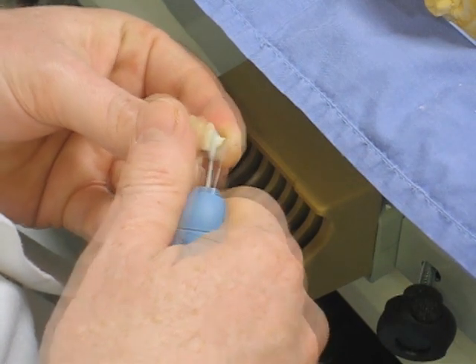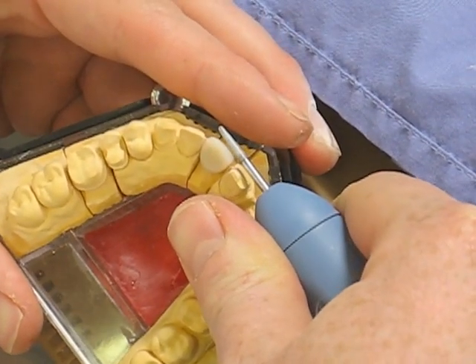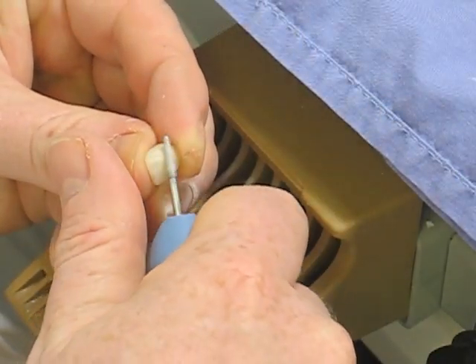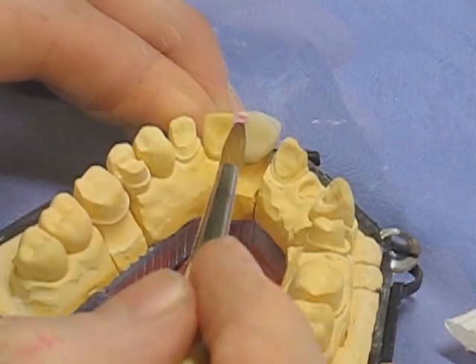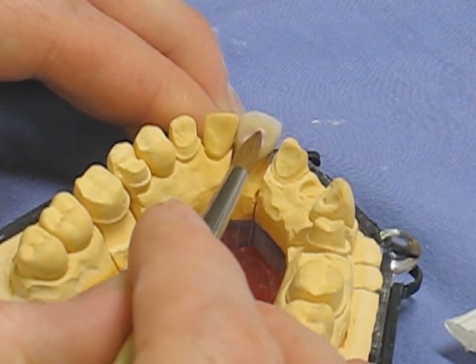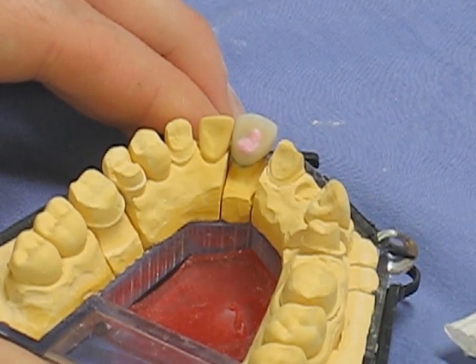After grinding the whole surface, check the mesial, distal, and incisal edge. Looking at the labial surface, it appears just a little too bulky — just wants a bit taken off the distal side to angle the labial surface correctly. Take a diamond bur and shape it more, so the incisal edge follows the arch rather than sitting like a piano key. A bit of moisture on the surface shows what it will look like when fired. A little more dentine shade is needed on the palatal surface, so add that and refire at a slightly lower temperature so the main crown won't slump. Condense well and refire until you have the crown shape you want — job done.